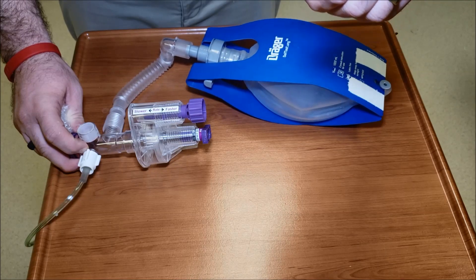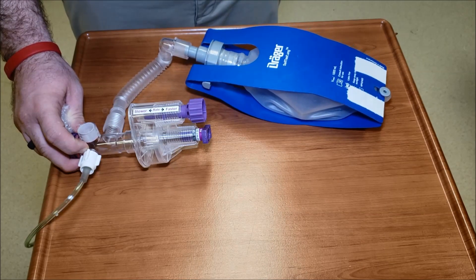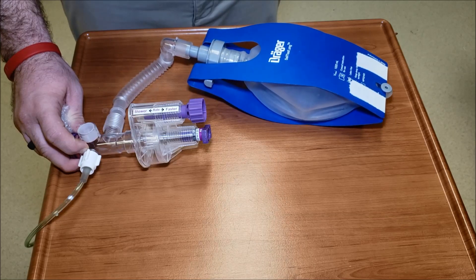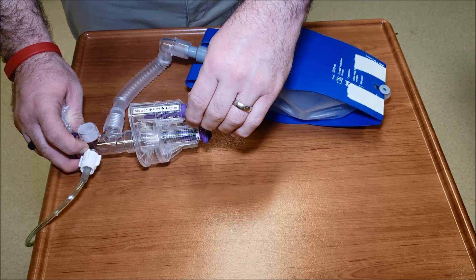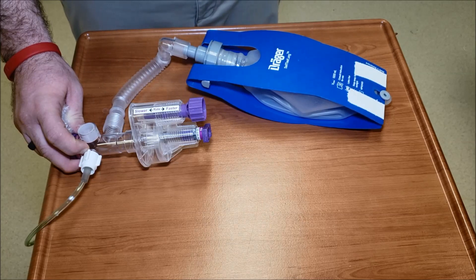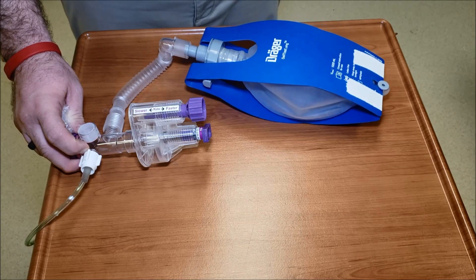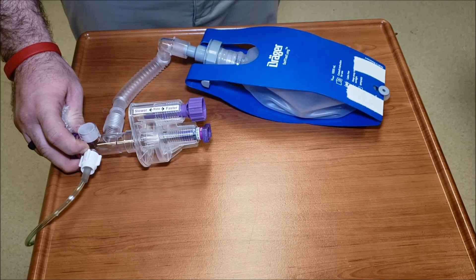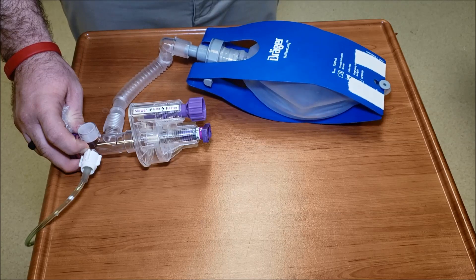We started low and now let me readjust this, slowly going outward, and I should hit a point here real soon. There we go. One thousand, two thousand, three thousand, four - a little bit fast. I'm going to go in a little bit more.